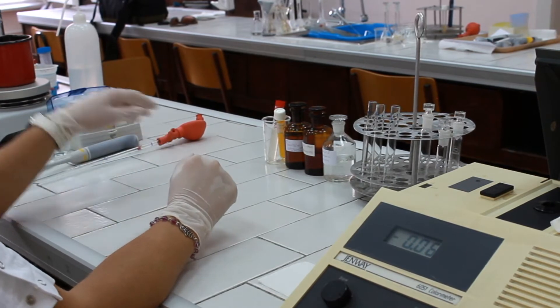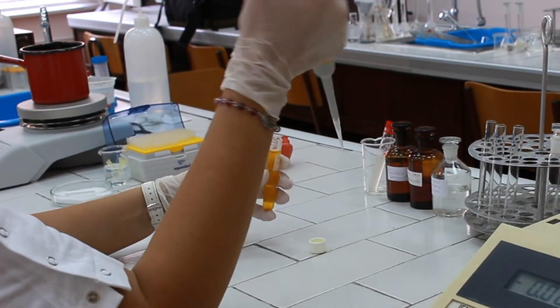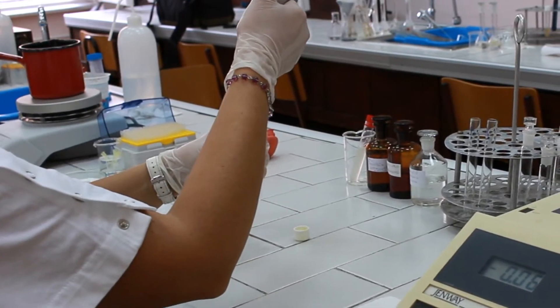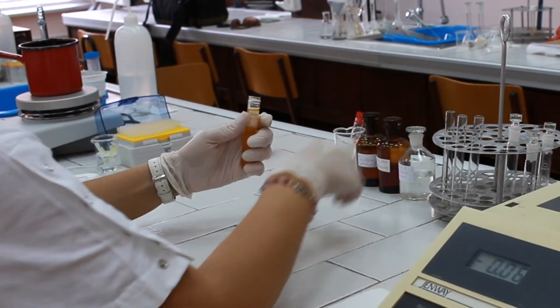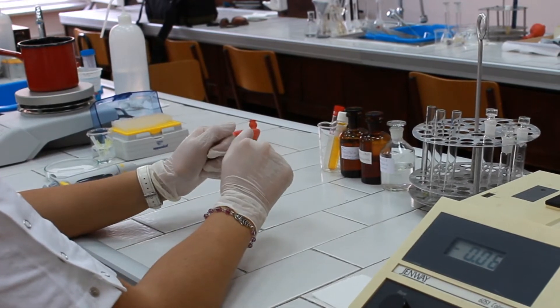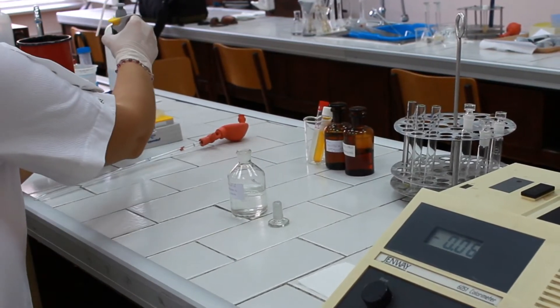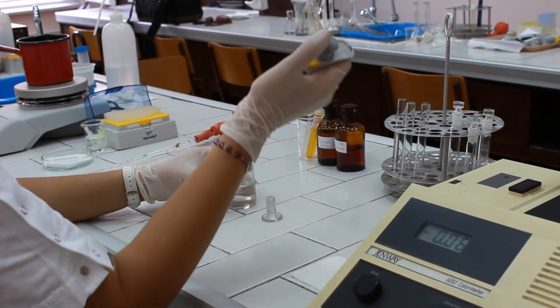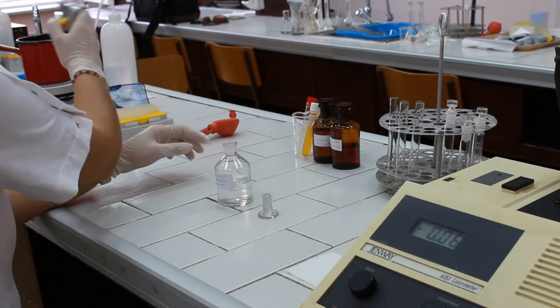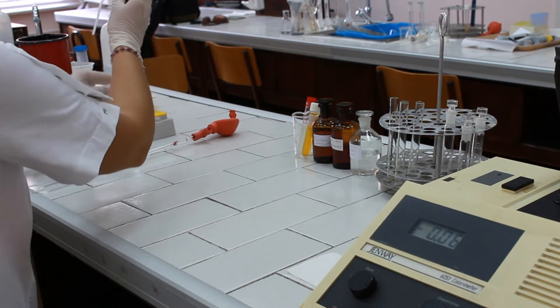Now we need to pipette 30 microliters of serum into the T test tube. Then pipette 30 microliters of standard glucose solution into the S tube, and finally 30 microliters of water into the blank tube.